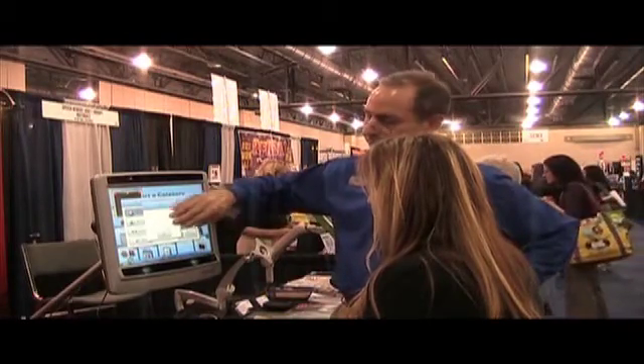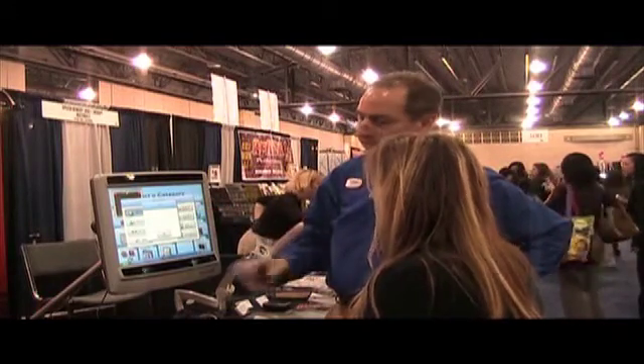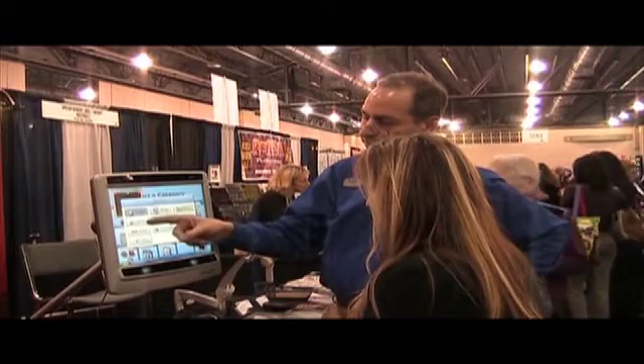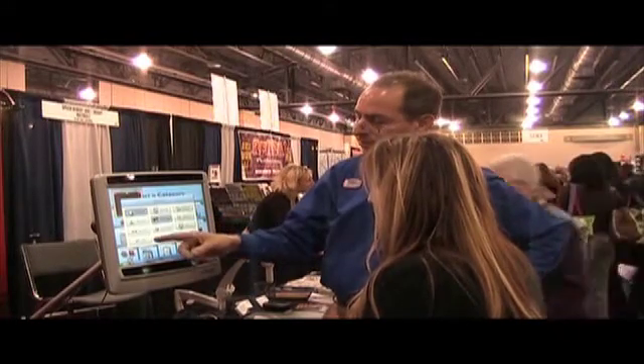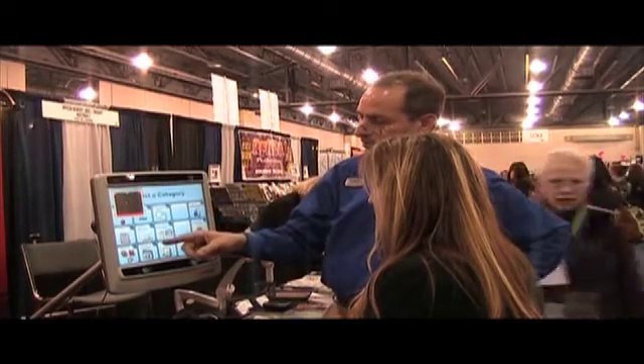That's your left eye calibration and your right eye calibration. Every eye has a little bit of jiggle to it. You're on what we call dwell. There are three modes: dwell, switch, and blink. Let's try dwell first. We'll try one or two things like that. We'll leave the track box up just for a second.